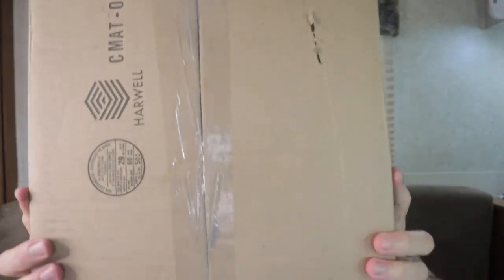This claims to be the best iontophoresis machine, and I wanted to do an unboxing today so we can see exactly what you get. I do have a pitcher of water here since I'll need that. Also, I didn't realize that a lot of people with this issue — hyperhidrosis, which is what it's called, excessive sweating — can have it happen in your hands, feet, groin area, and under your armpits. I was talking to a friend who told me she has this issue, so I might let her borrow this after a while too.